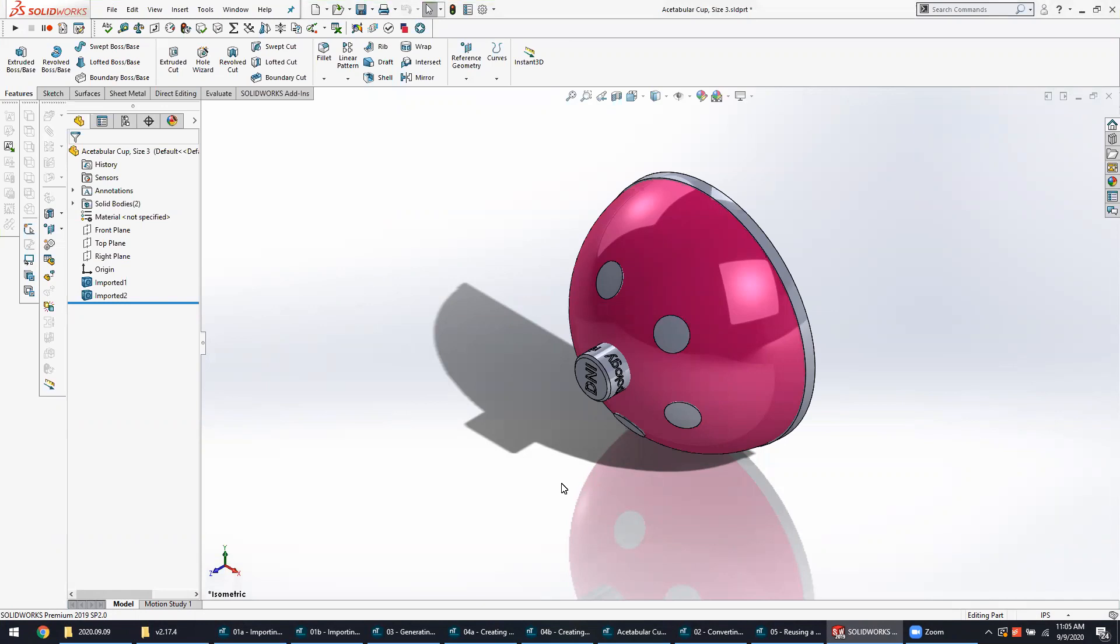Hey everybody, thanks for joining today's NTOP Live about orthopedic lattice basics. Today's session will be about the basic lattice design workflow that one can typically expect to see and use when designing lattices for osseointegration.